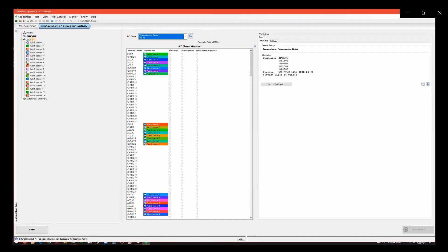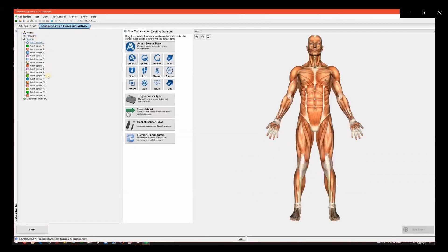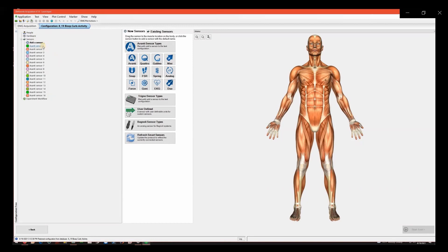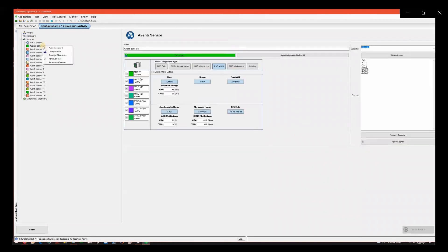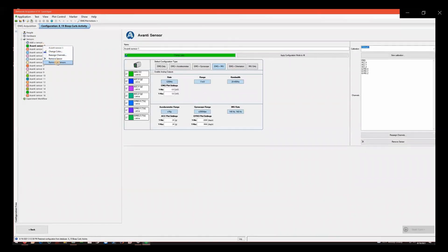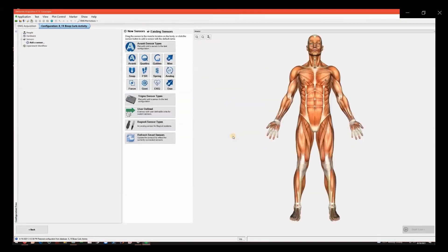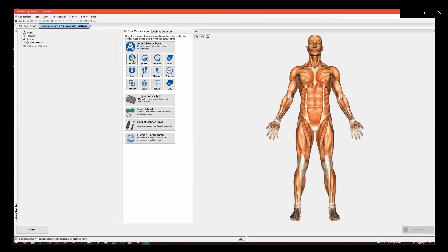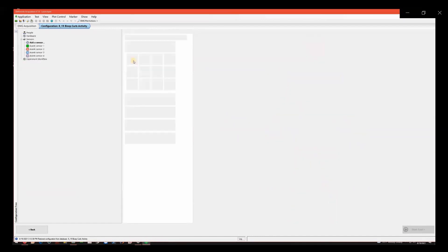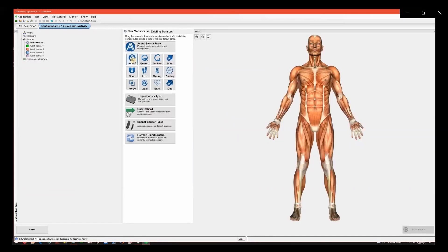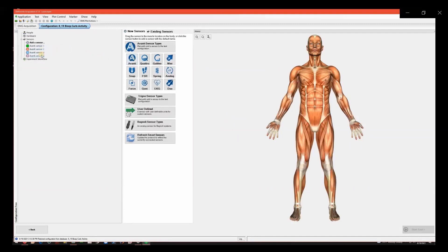Next, click on Sensors. There are 16 total sensors listed in numerical order. It is recommended to only activate the number of sensors that you will be using in your project. Right-click on Avanti Sensor 1 and select Remove all sensors. Click OK in the dialog box. Click on the Avanti symbol under Avanti Sensor Types to add the correct number of sensors you will be using. You can right-click again on a sensor to remove it individually if needed.